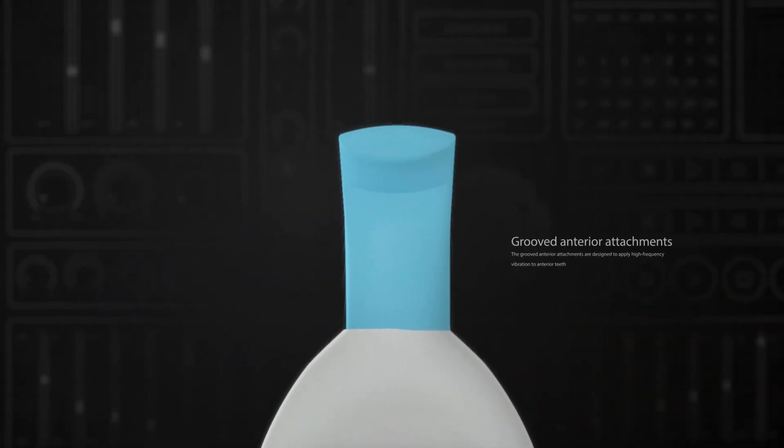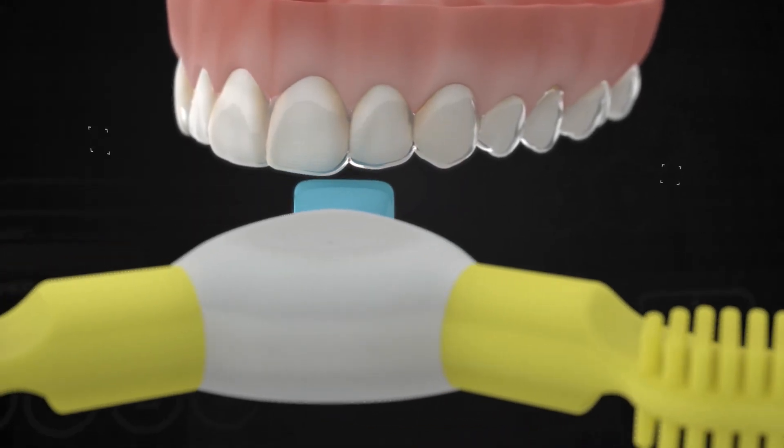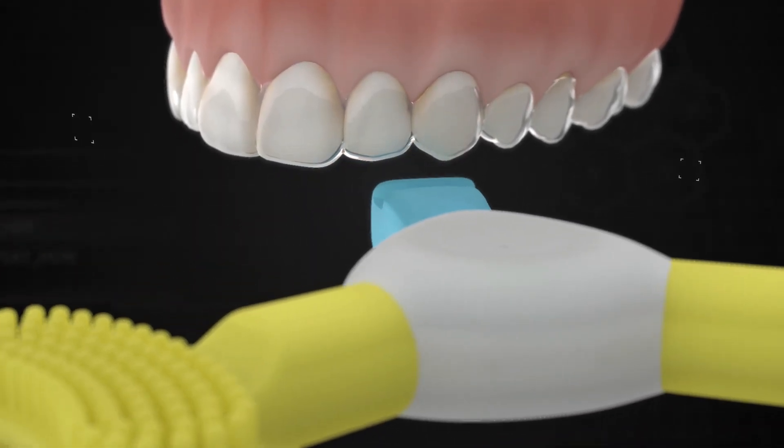The grooved anterior attachments are designed to apply high frequency vibration to anterior teeth which may be lagging during treatment.